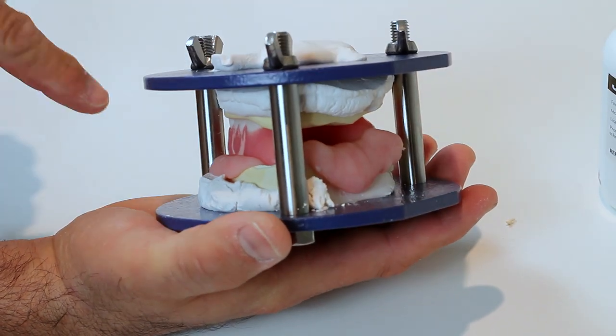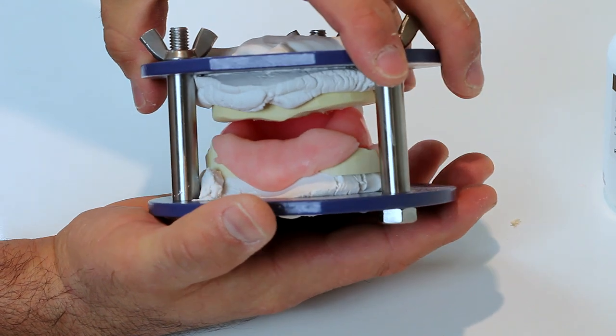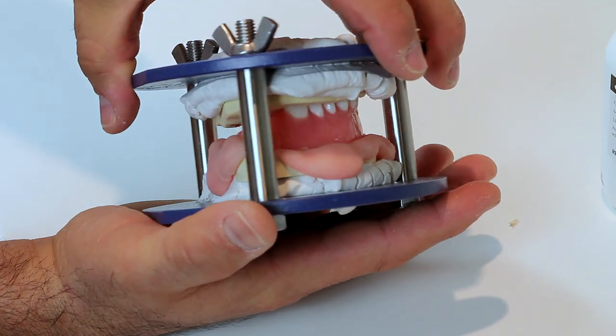After mixing Lange's Jet Denture Repair Acrylic, remember, it has a set time of less than 10 minutes.